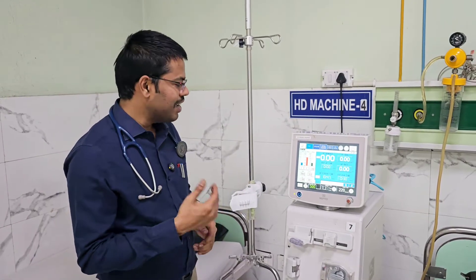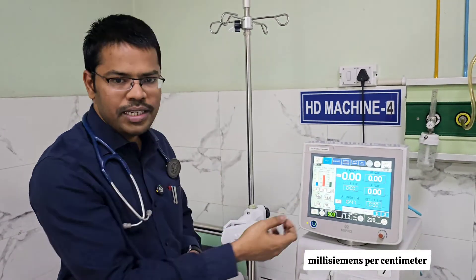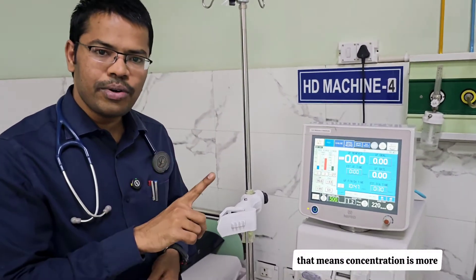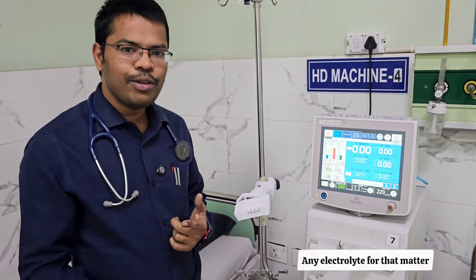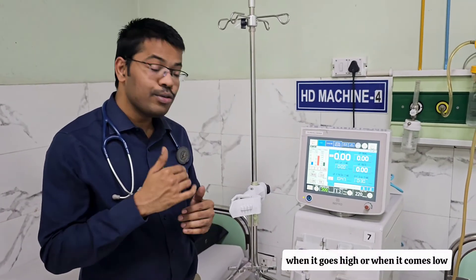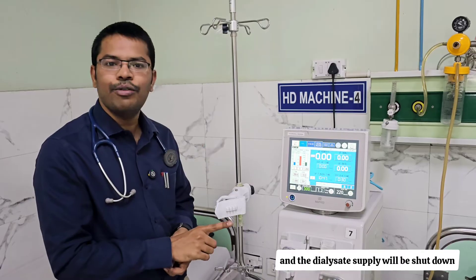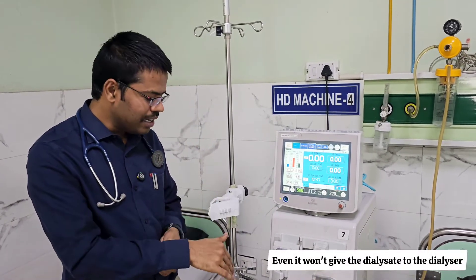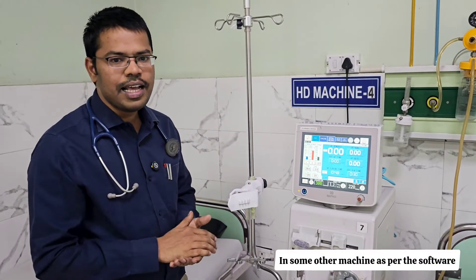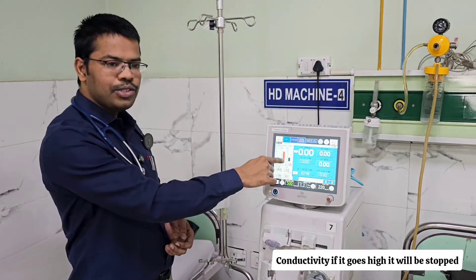As medical professionals, we must know the normal conductivity value is 12 to 16 mS/cm — this is electrical conductivity. If it goes above 16, concentration is too high; if it goes below 12, concentration is too low. In dialysis, electrolyte changes almost always represent sodium changes. When conductivity goes high or low, a conductivity alarm triggers and the dialysate supply shuts down immediately — it won't even deliver dialysate to the dialyzer. That is how protective this system is.